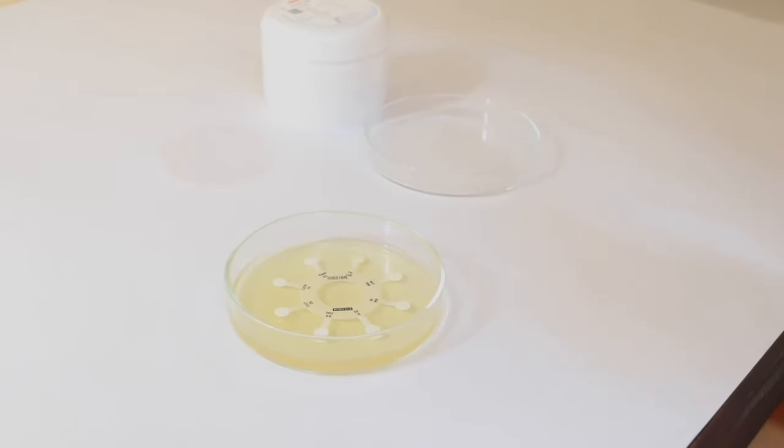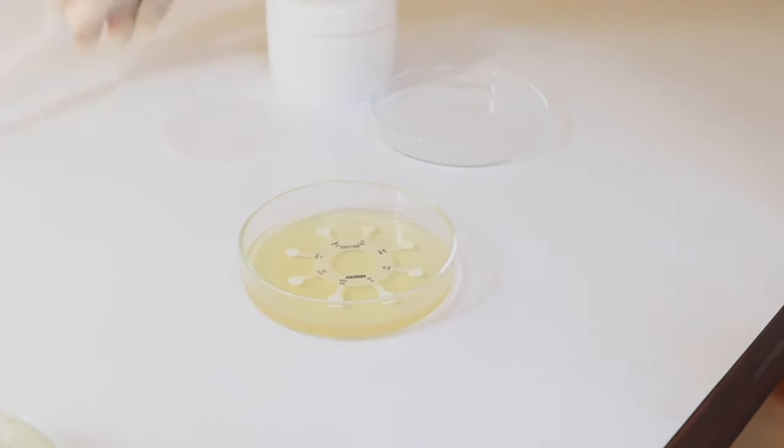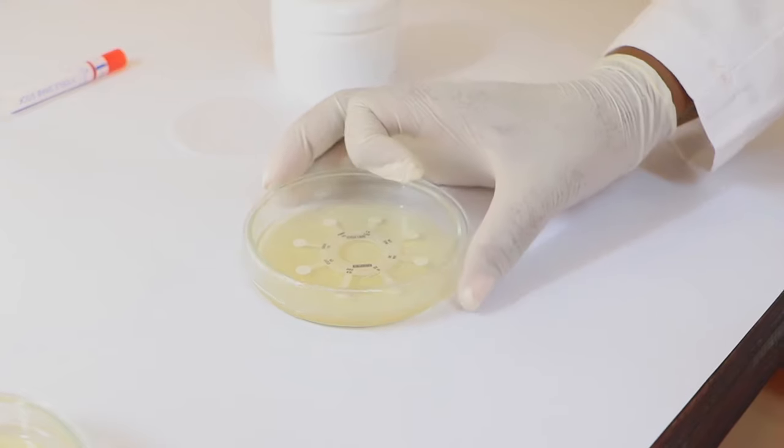Incubate the plates upside down at 37 degrees Celsius for another 24 to 48 hours.